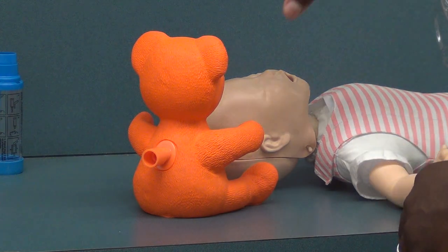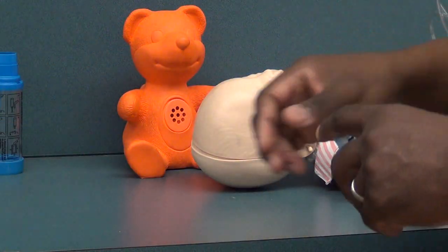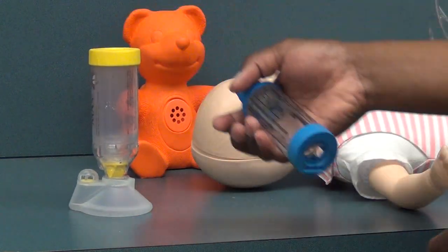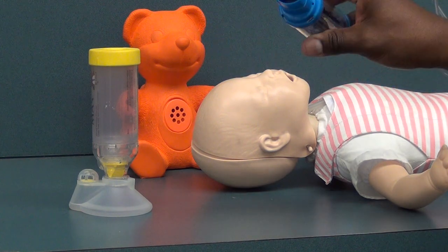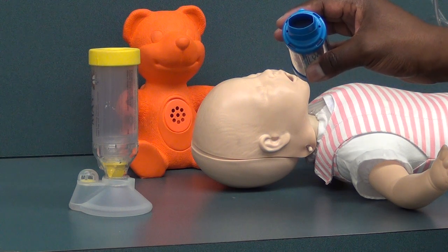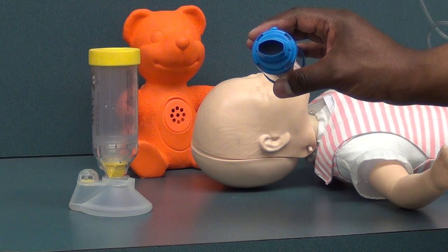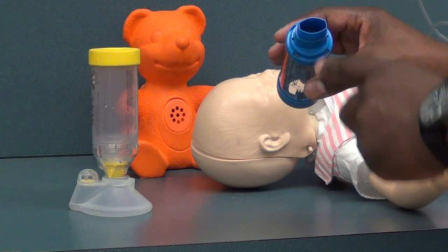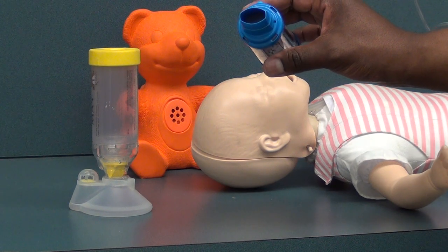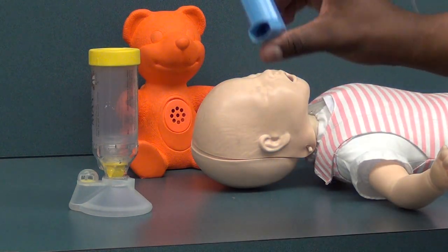When we talk about aerosolized medications, we have our MDI and our aero chambers. From a historical standpoint, aero chambers could not be used because they have a one-way valve on the mouthpiece side that only opens when the patient takes in a breath. Babies from a physiologic standpoint aren't strong enough to open that one-way valve. So we use a spacer — remember, spacers do not have the one-way valve. The method of delivery is still the same, so we would make sure our medication is mixed.